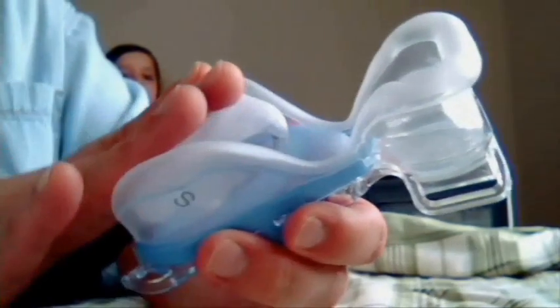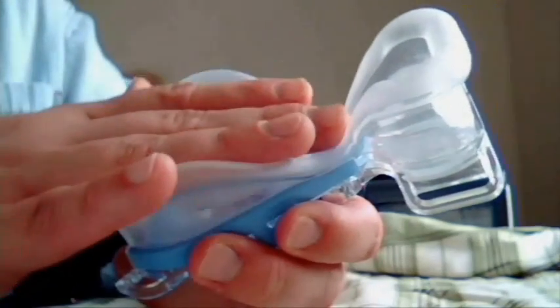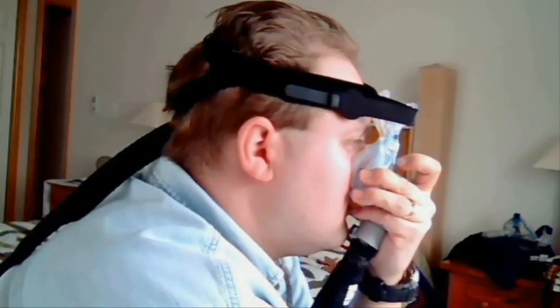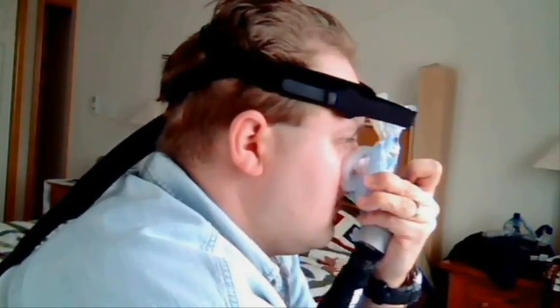The inner part is only going to be the air pressure pushing back against you. So the next section is wearing these. I'm going to turn the air on — watch this thing, see how it sucks out? Even though I have that strap off, normally with the strap on it still does that. You don't adjust it before you turn the air on — you aren't going to get the right fit because it's going to come out and actually suck your face in. Back to the Easy Life here — I'm holding the two outer seals. See how that just engages your nose? That's the big thing about these two types.